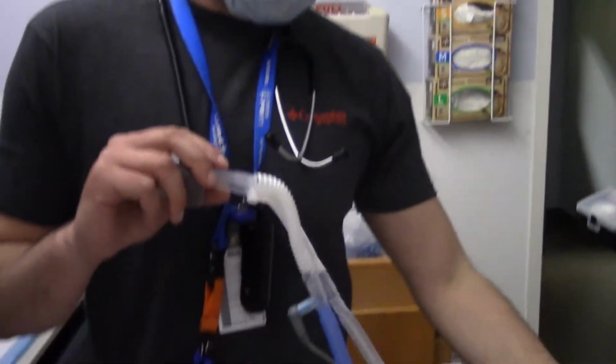That's why we use it in the NICU world pretty much exclusively, because these are tiny little lungs, fragile little lungs, and we want to deliver that kind of necessary therapy in the most gentle form possible. So, inspiratory, we've got all of our stuff connected.